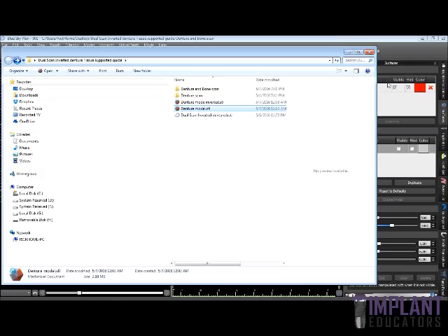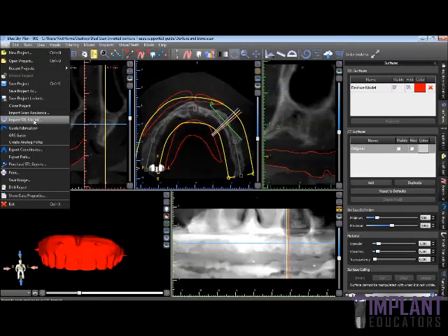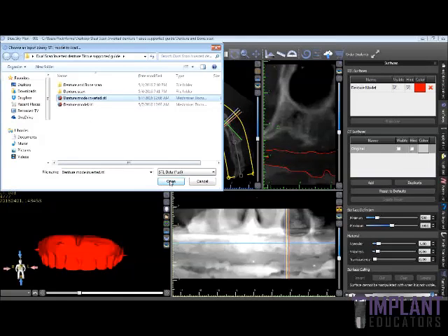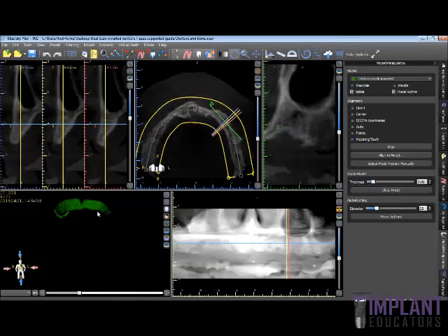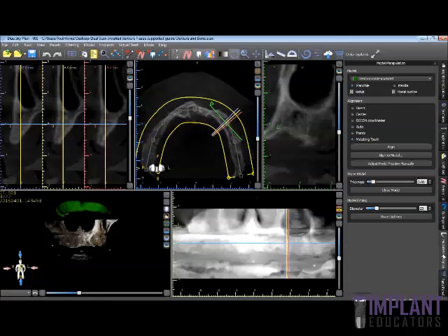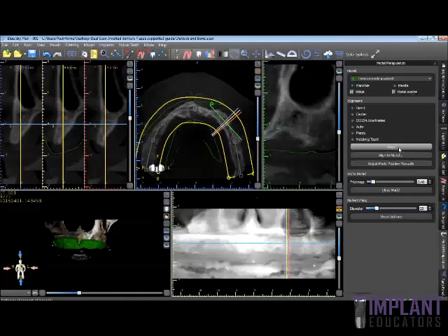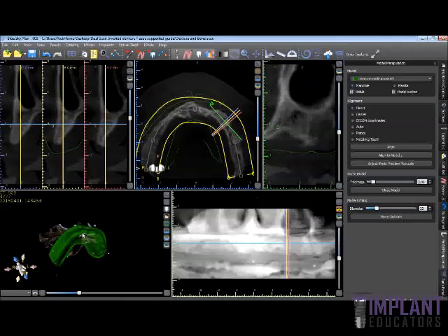Go back to our Blue Sky Plan software. At this point we can import this as an STL file — we'll go ahead and Import STL Model, select 'denture model inverted,' and open it. It's going to want to align to teeth; we're not going to use that method. We can go to our Surfaces tab and see it's not actually aligned. So what you have to do is go to the Model Manipulation tab, click Direct, and hit Align. You'll see it goes right back to the original position where the previous denture scan was aligned. So we have a good representation now of our soft tissue — the intaglio surface of the denture on which we're going to make our model.